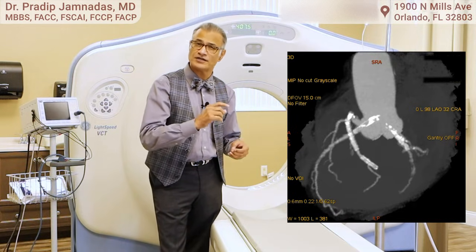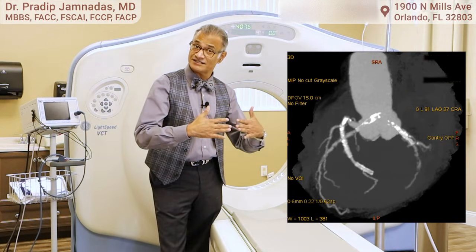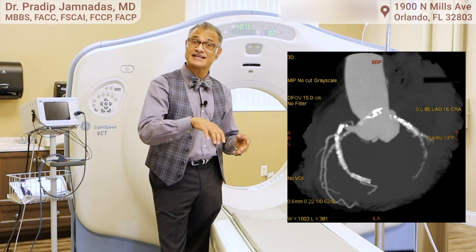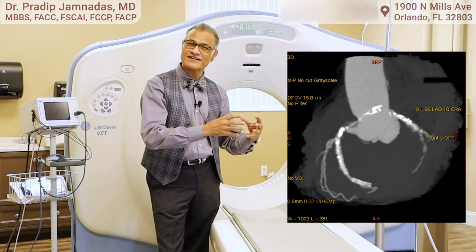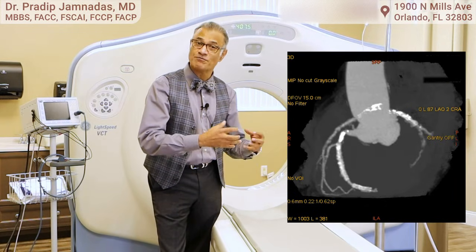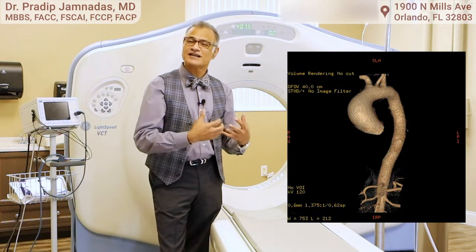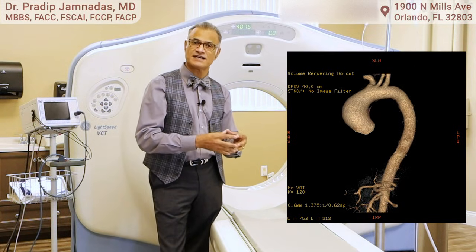We can also get a pretty good picture of the valves and the amount of calcium on the valves, as well as muscle function. We can tell about the thickness of the heart muscle, previous heart attacks, and identify areas of the heart that are not moving. We can identify blood clots both inside the left ventricle and the left atrium. We can also identify aneurysms of the heart.